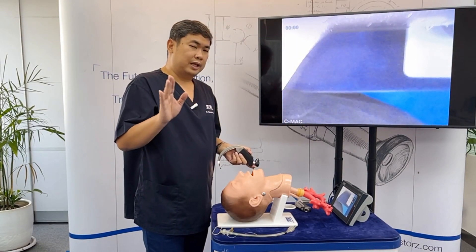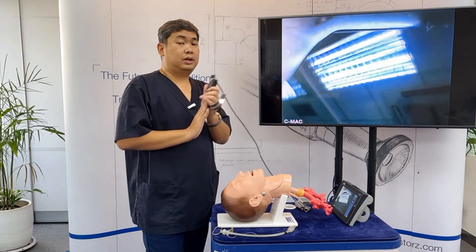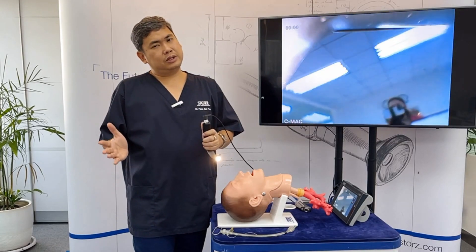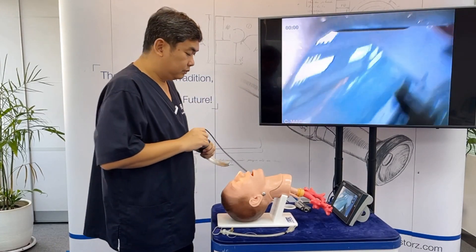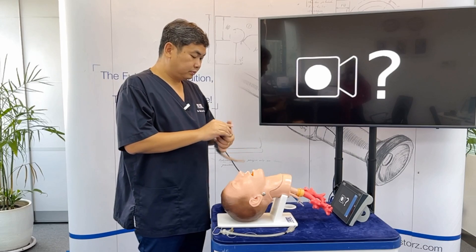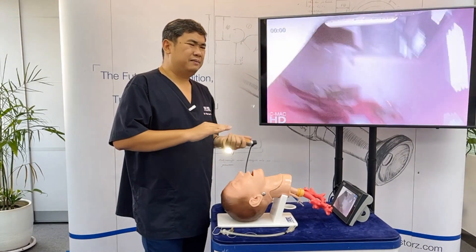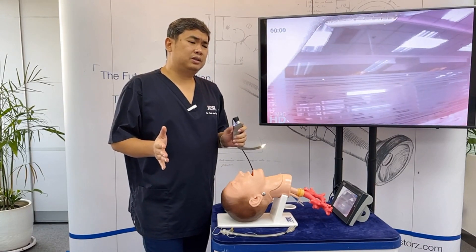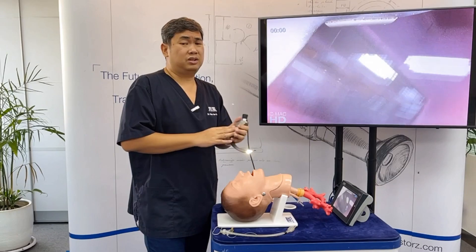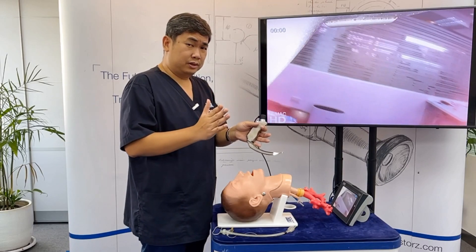Advise participants that with a normal patient, they should use the hyper-angulated blade to practice so that when they encounter a difficult patient, they are already used to it. However, with a difficult patient, try the Macintosh blade first — there are cases where clinicians couldn't intubate with a hyper-angulated blade but succeeded after switching to the Macintosh. If the Macintosh is successful, well and good; if not, it's easy to shift to the hyper-angulated blade.